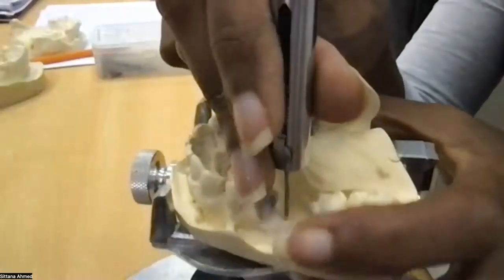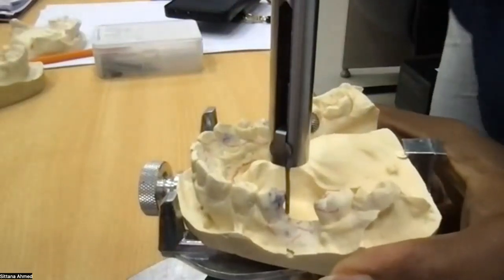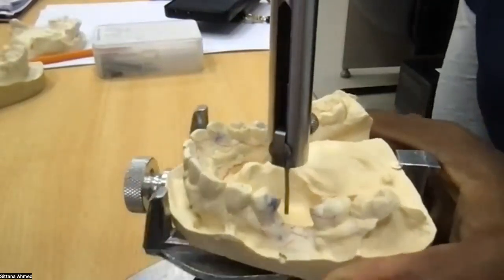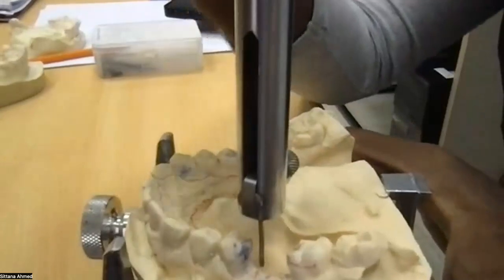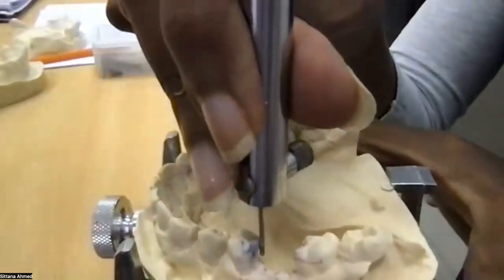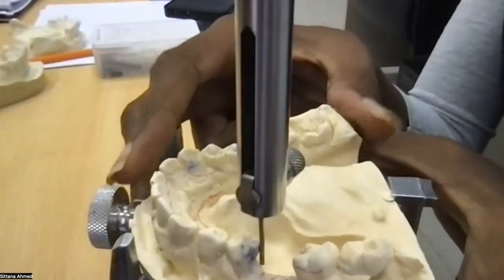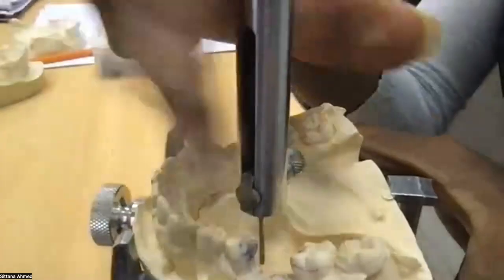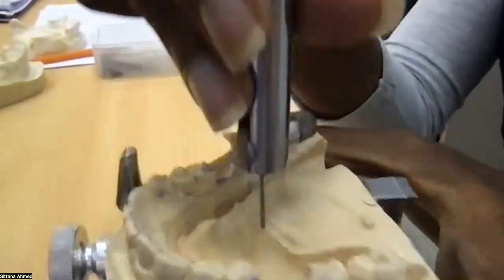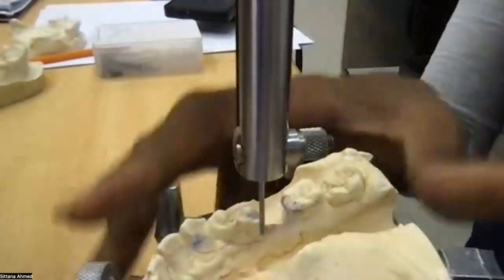I need to make all the undercuts equal. So this undercut here is absolutely at 0. They were kind of as equal as possible. So I need to keep shifting forward, backward until they are equal. In my opinion, it was not very bad, or maybe a little tilt as such. And now they are equal, equalish. Yes, they are equal. I finish from that.